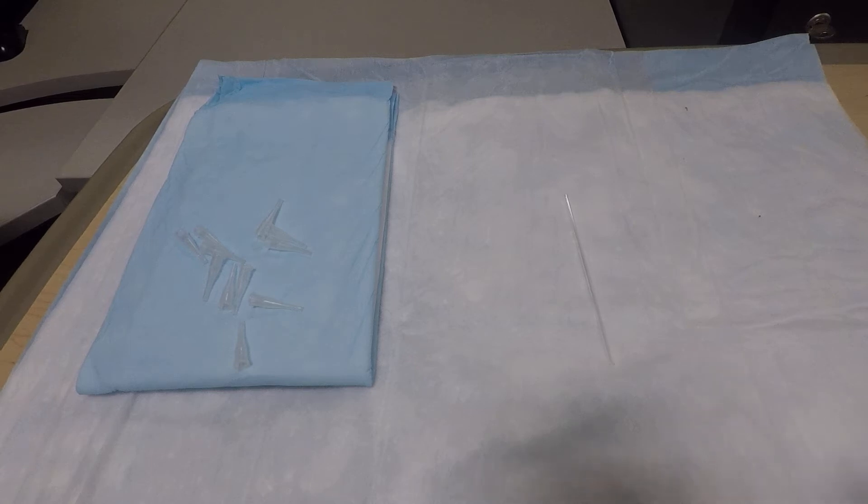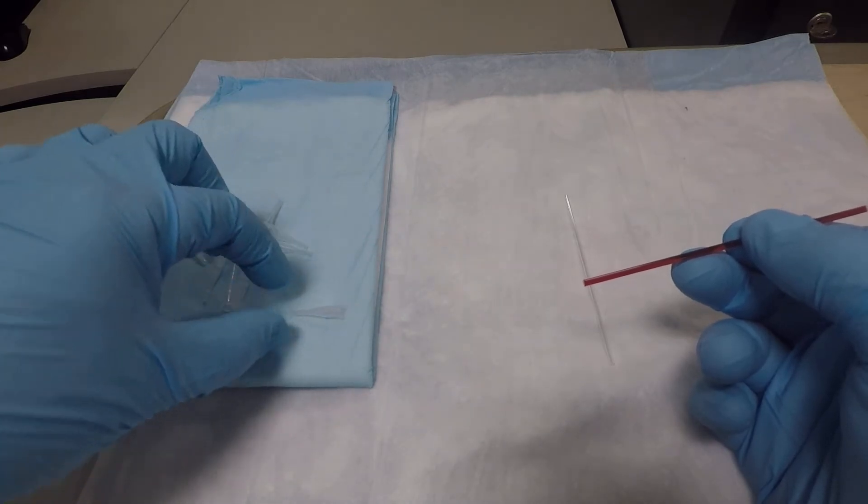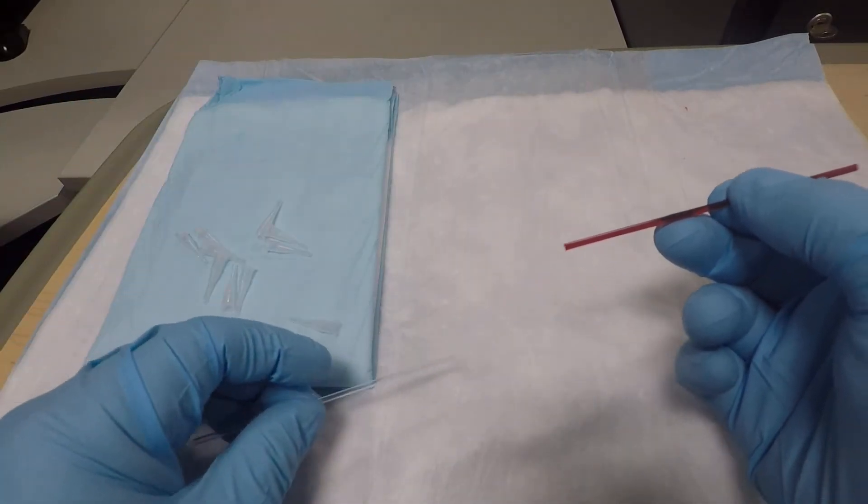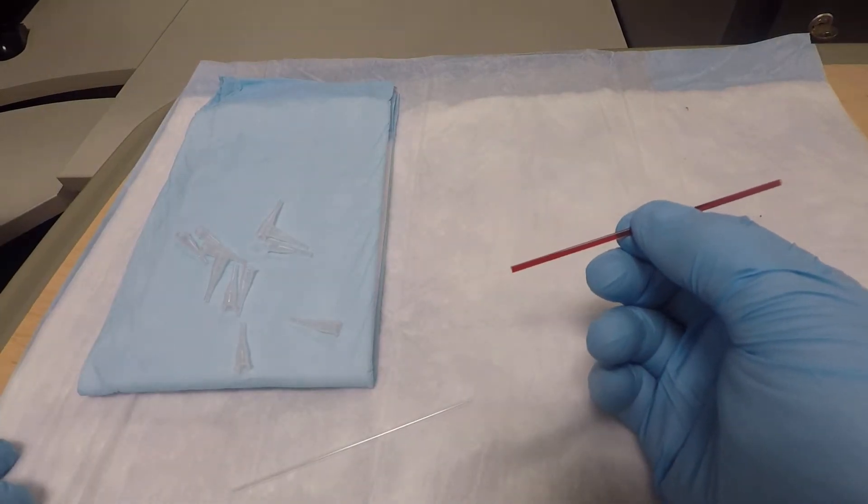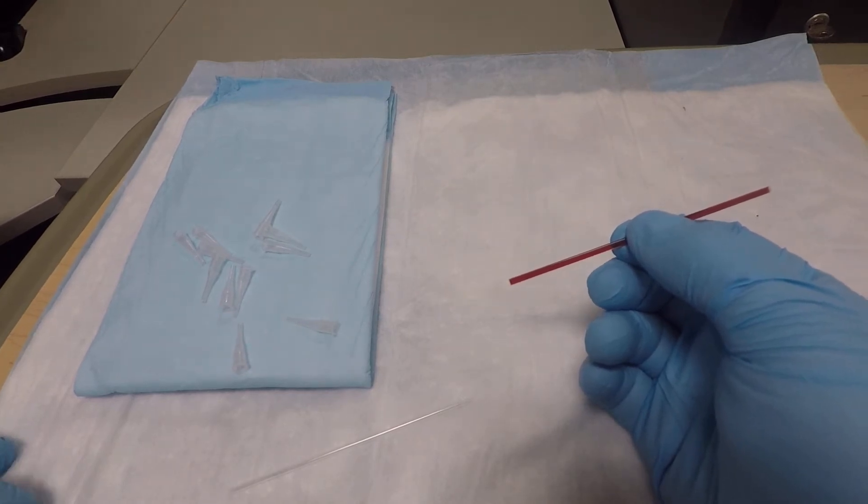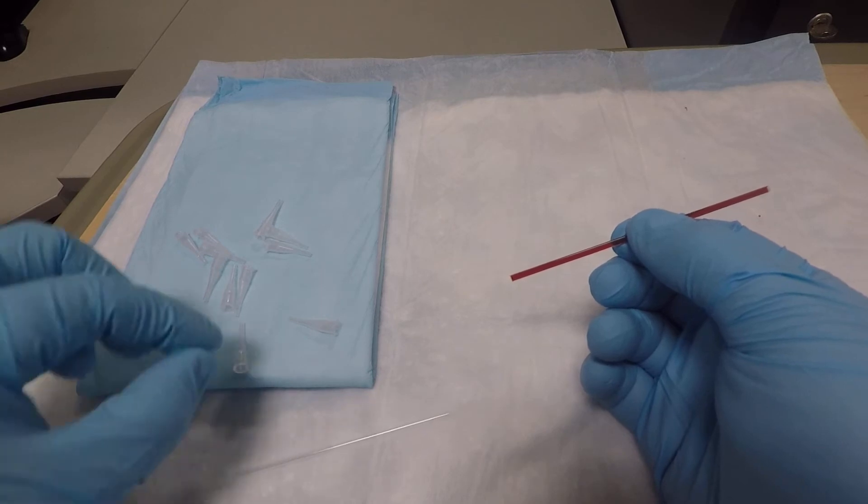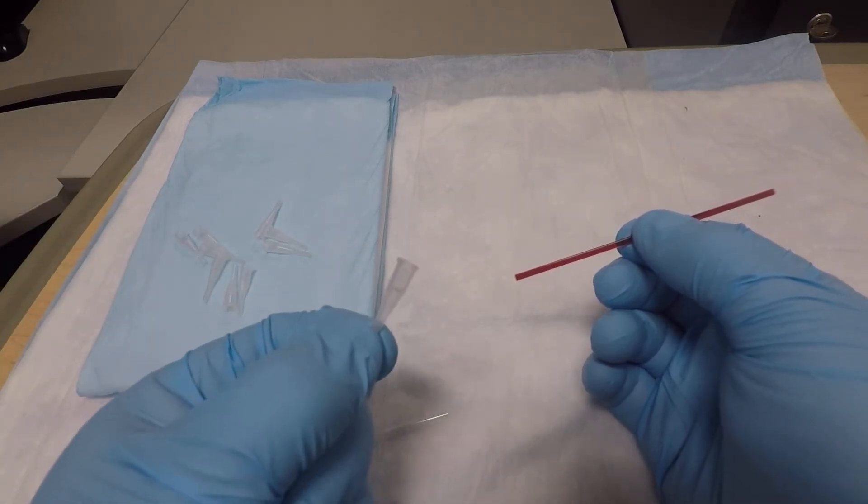Welcome to how to use clot catchers when transferring samples from one capillary tube to another. When we get a capillary sample, sometimes we need to transfer it to another tube to get rid of microclots that may be present. I'm going to show you how to use these little clot catchers.